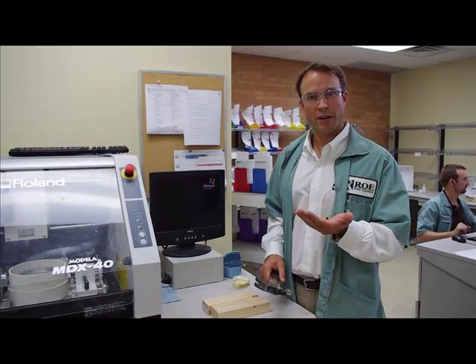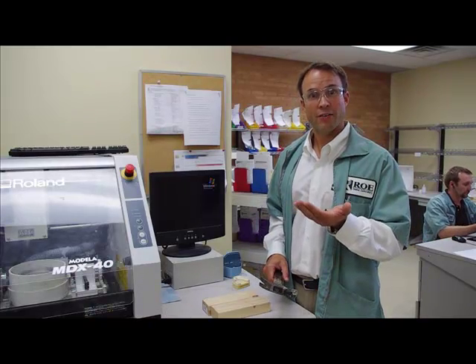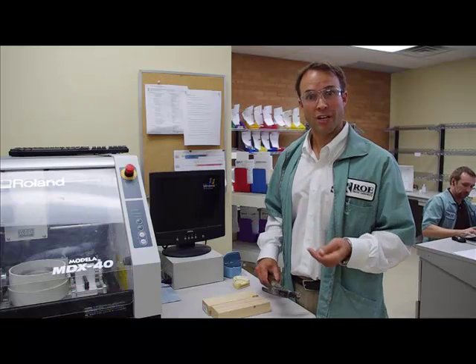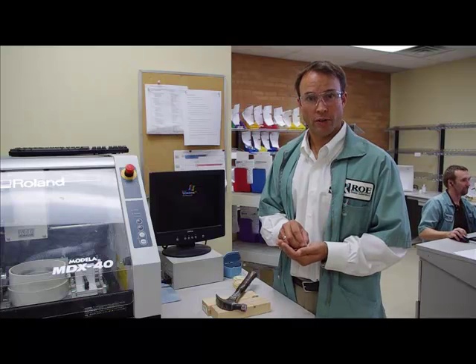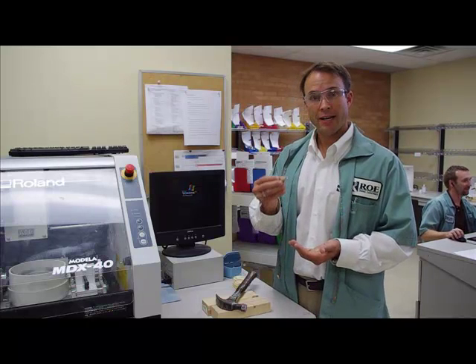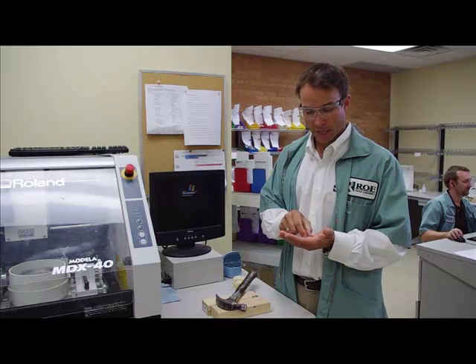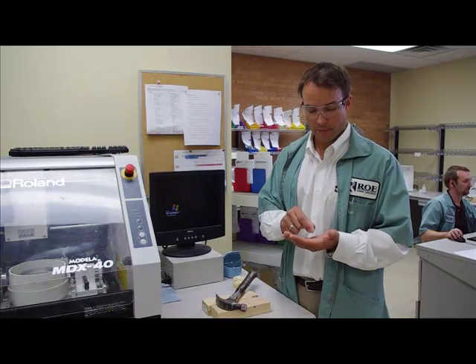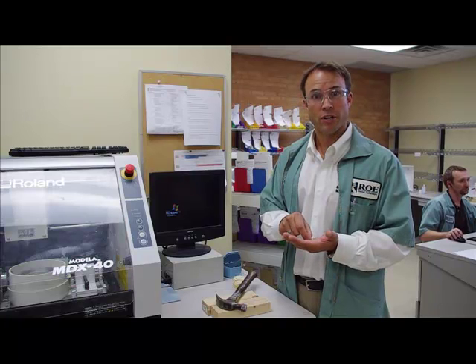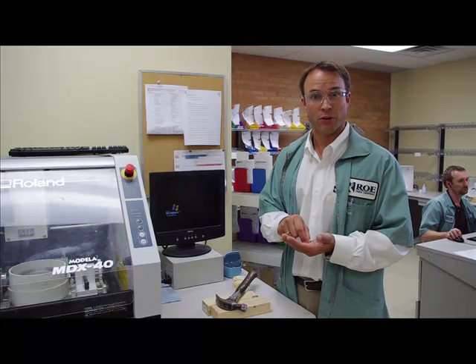Alright, so let's compare the fracture toughness of restorations you use in your office every day compared to the TLZ all zirconia restoration. In my hand I have a 4 unit bridge porcelain to metal, a porcelain fused to zirconia unnamed brand, and low fusing porcelains and a couple other porcelain fused metal crowns.